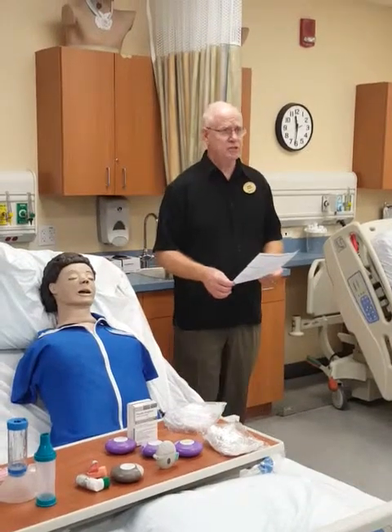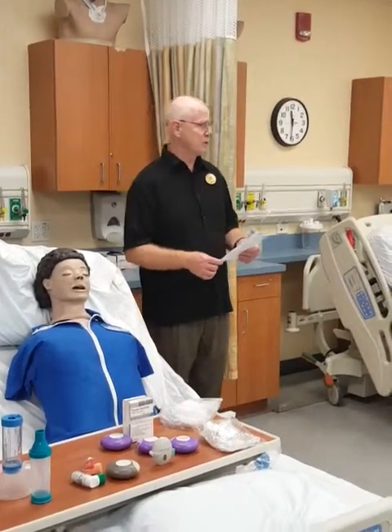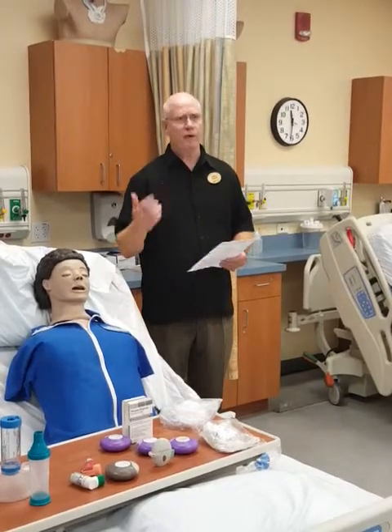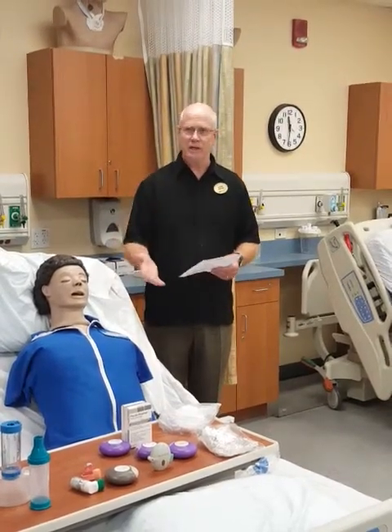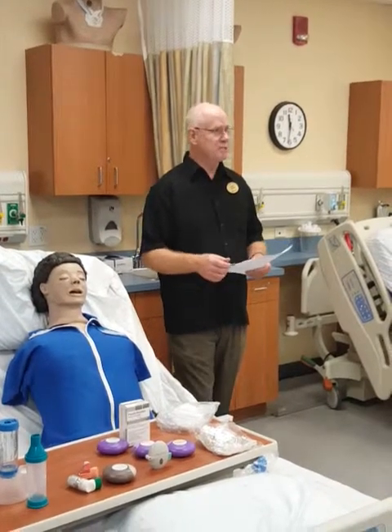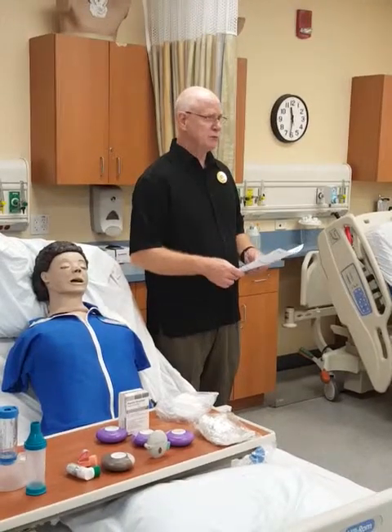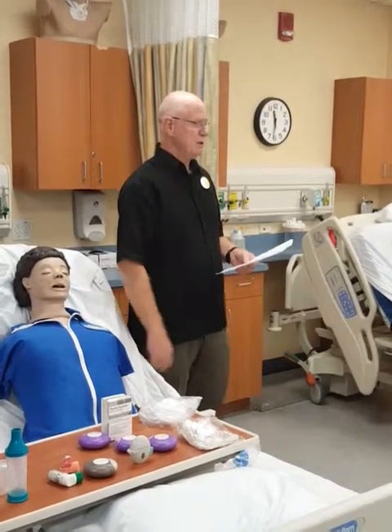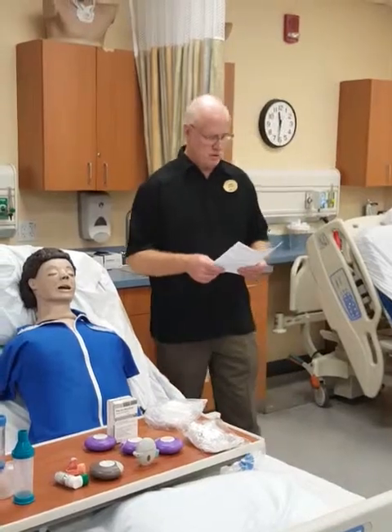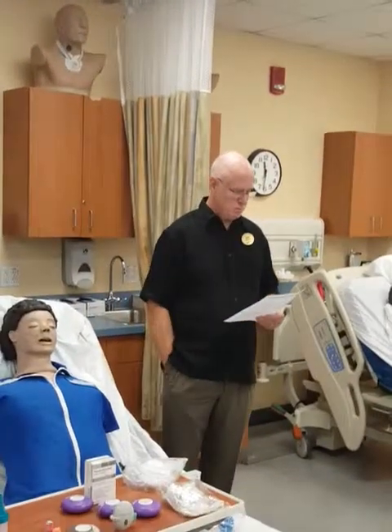Don't use jargon like 'we're going to aerosolize some bronchodilators and relieve your bronchospasm' or 'it's going to increase your peak flow.' Instead, say: 'Your doctor ordered some medicine that you're going to breathe in — it's going to help you breathe a little better.' Something very simple. The more complex, the more confused patients get and the more questions they have, so explain things in simple terms.